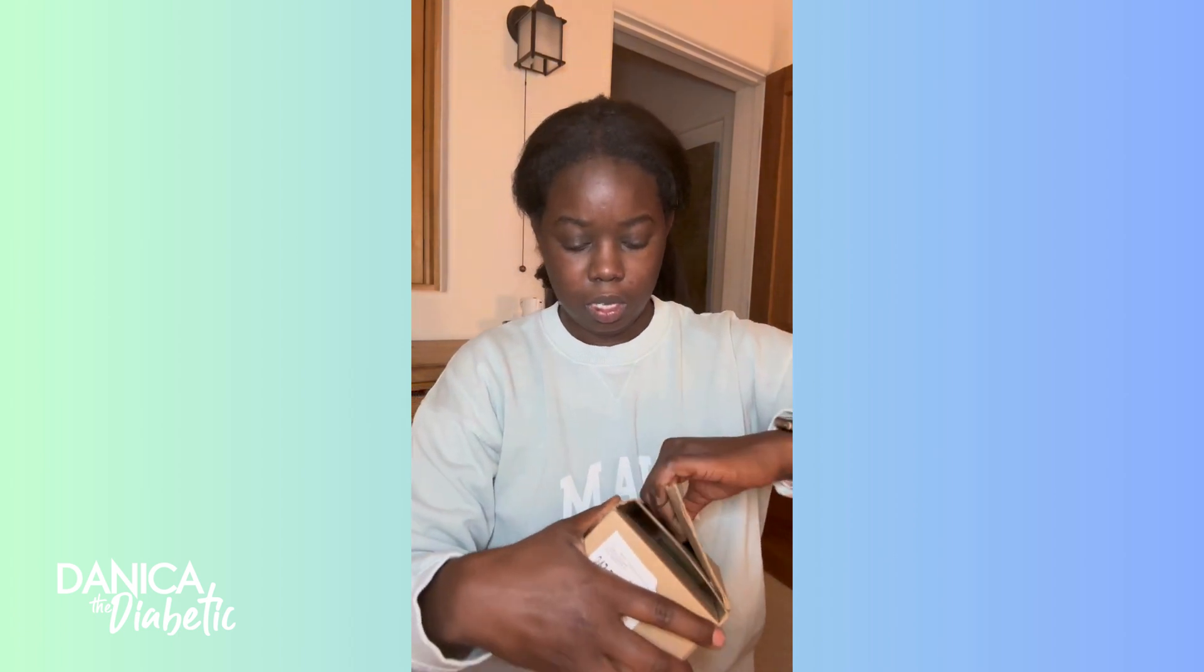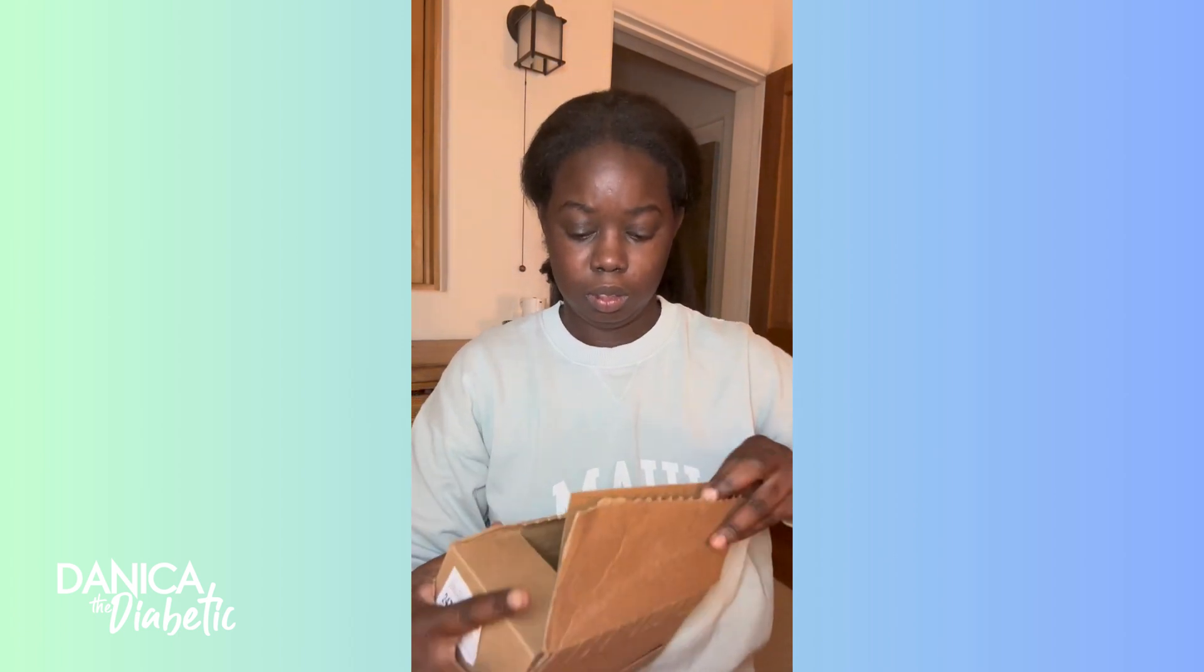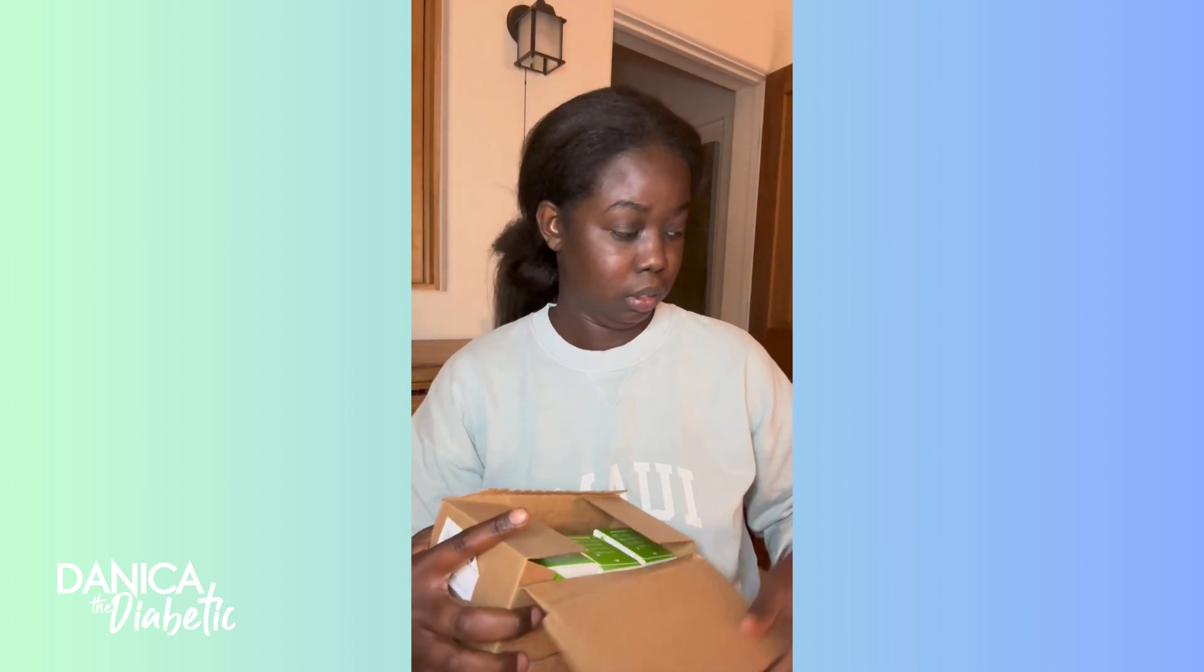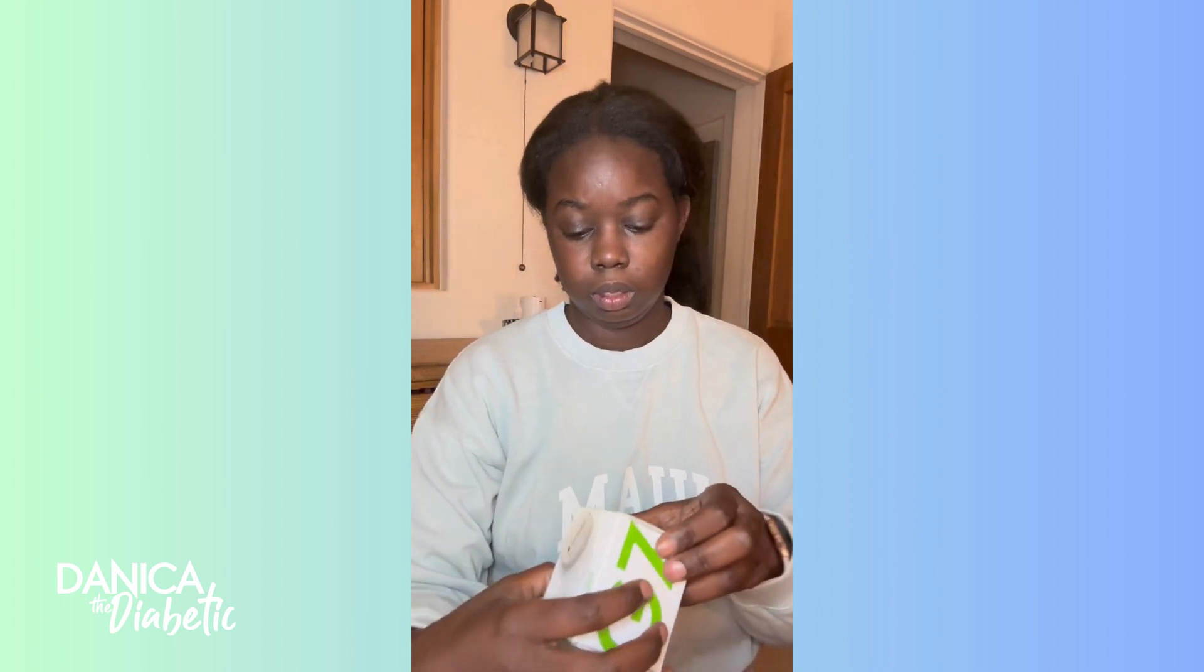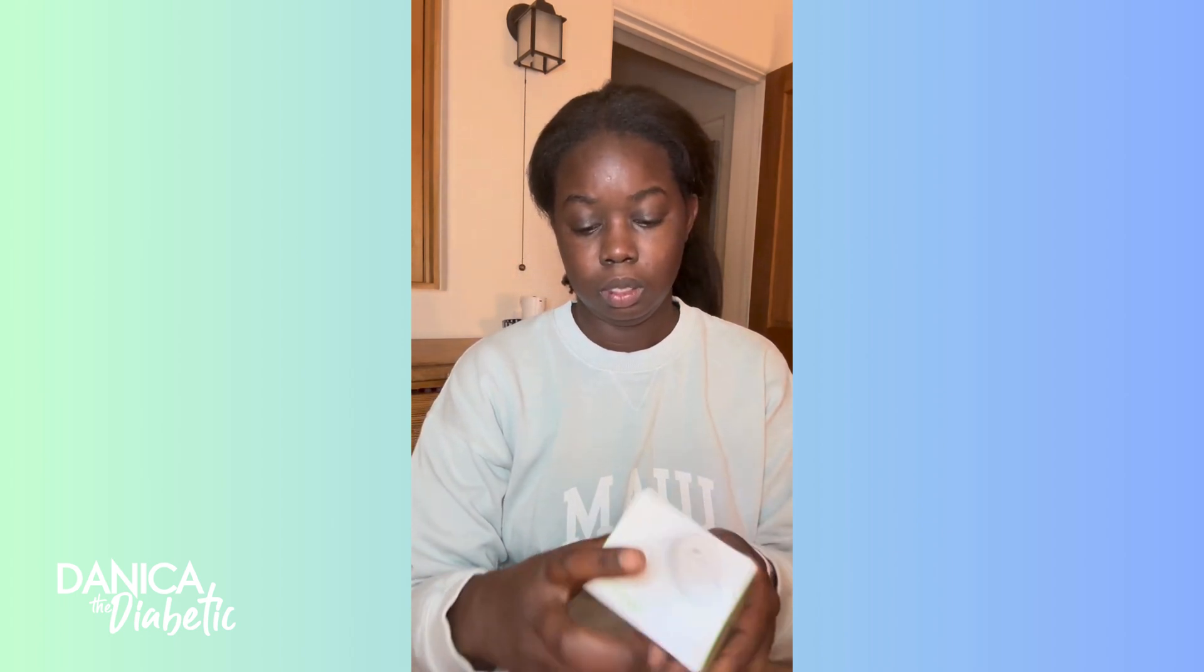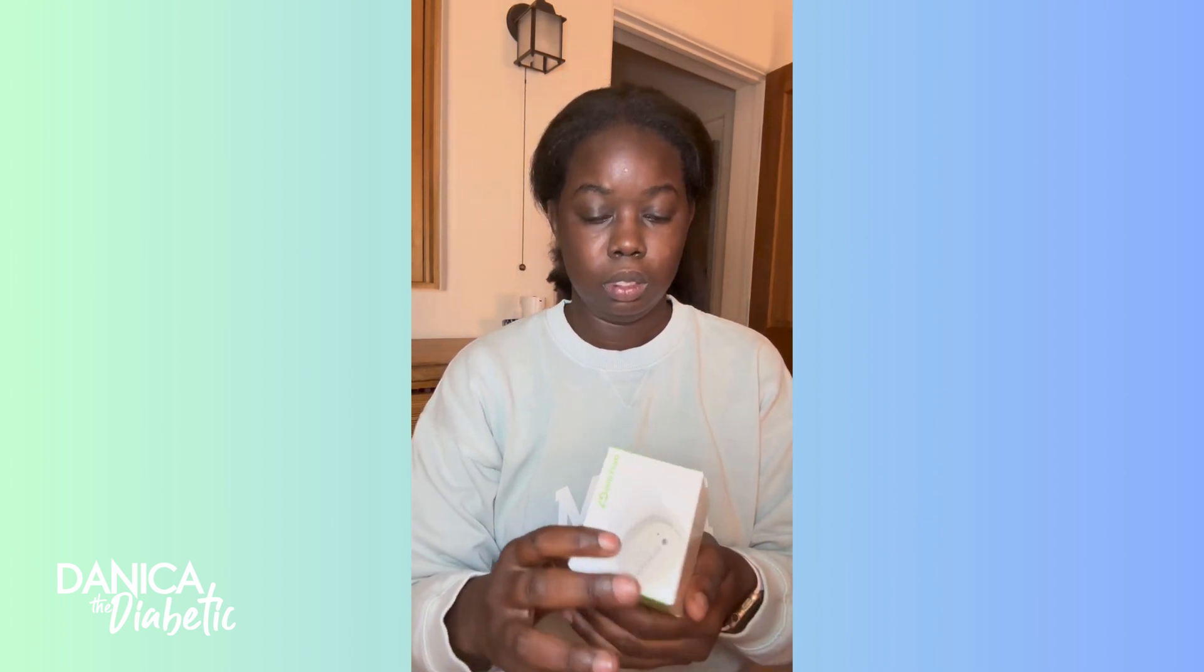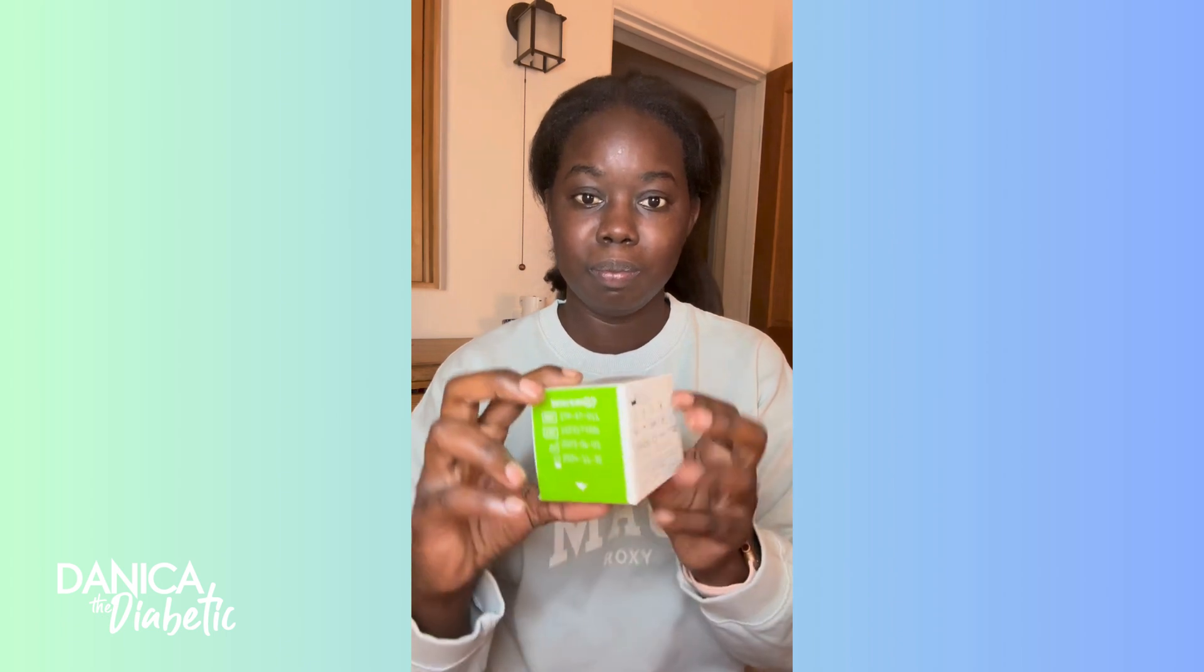As you can see, it's on writing file seven and then it'll switch to processing. Processing goes a little bit quicker. I'm going to pause here and show you guys, hey, these are my replacement G7s. So glad these came in the mail. I timed it so I could do my update. I checked them out to make sure that they have this white line. And as you guys can see, this is that.